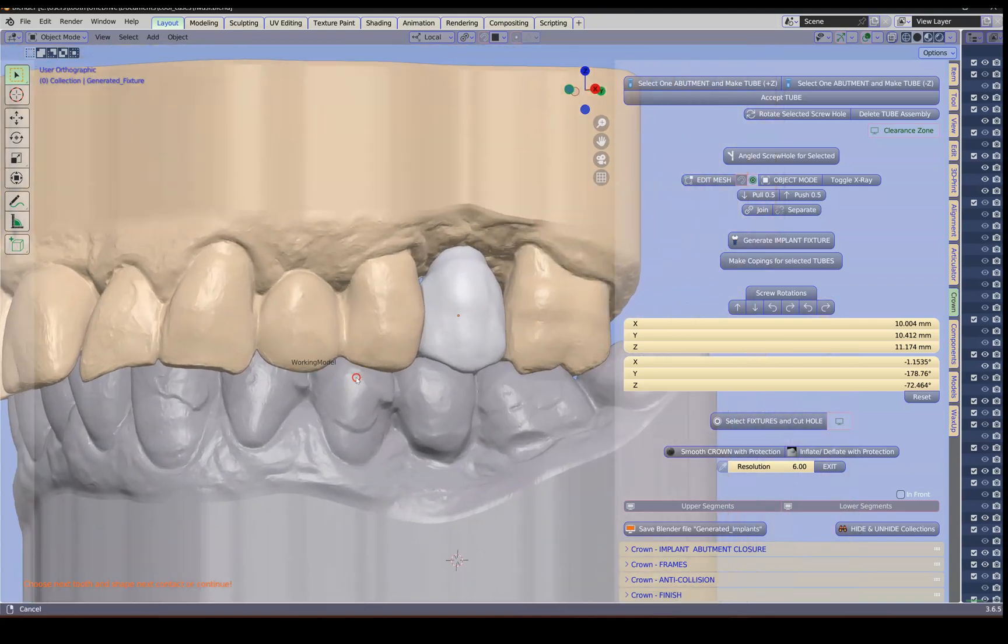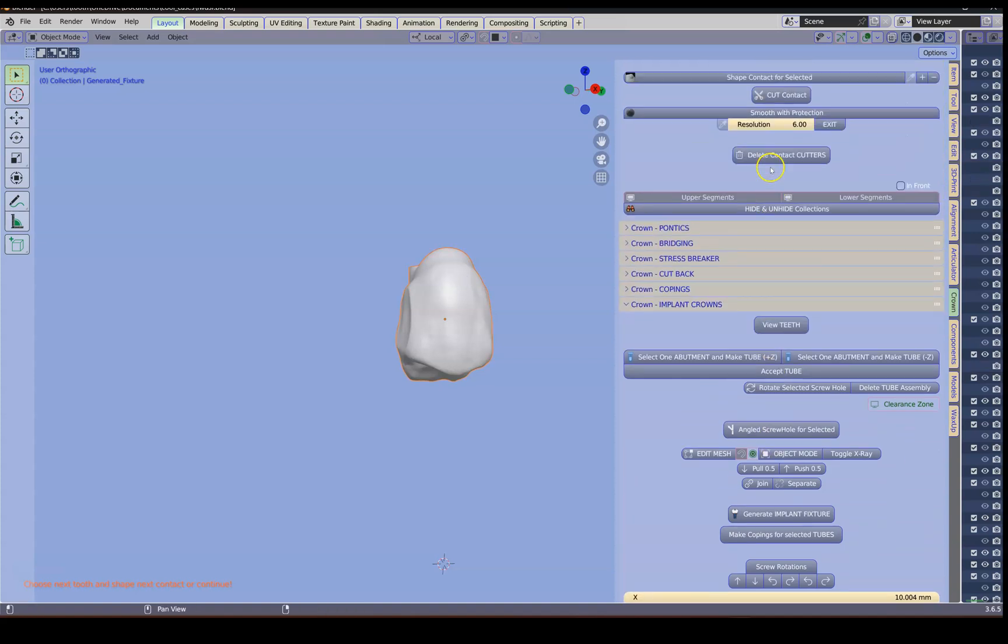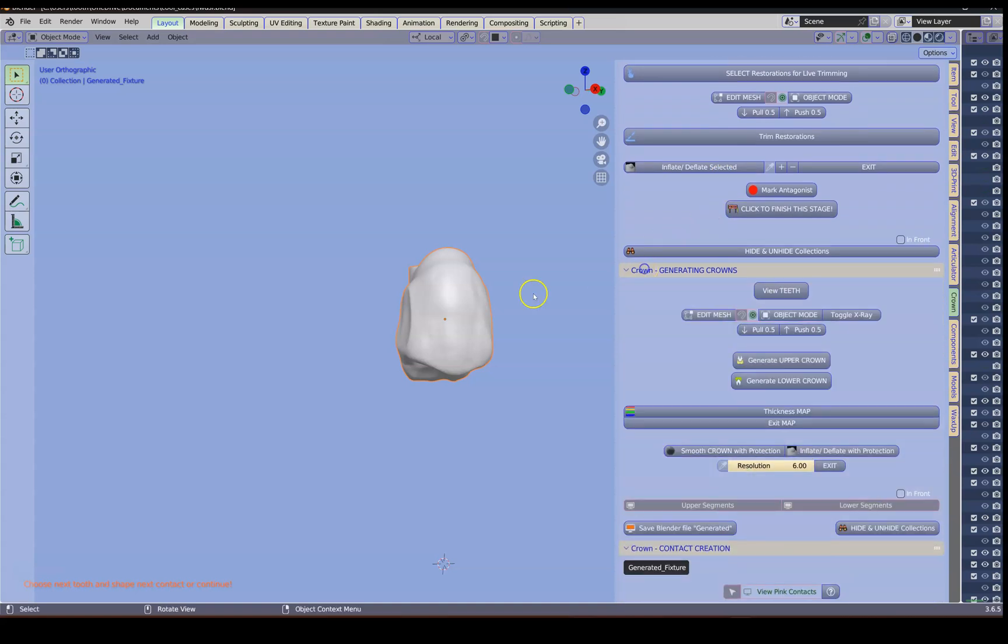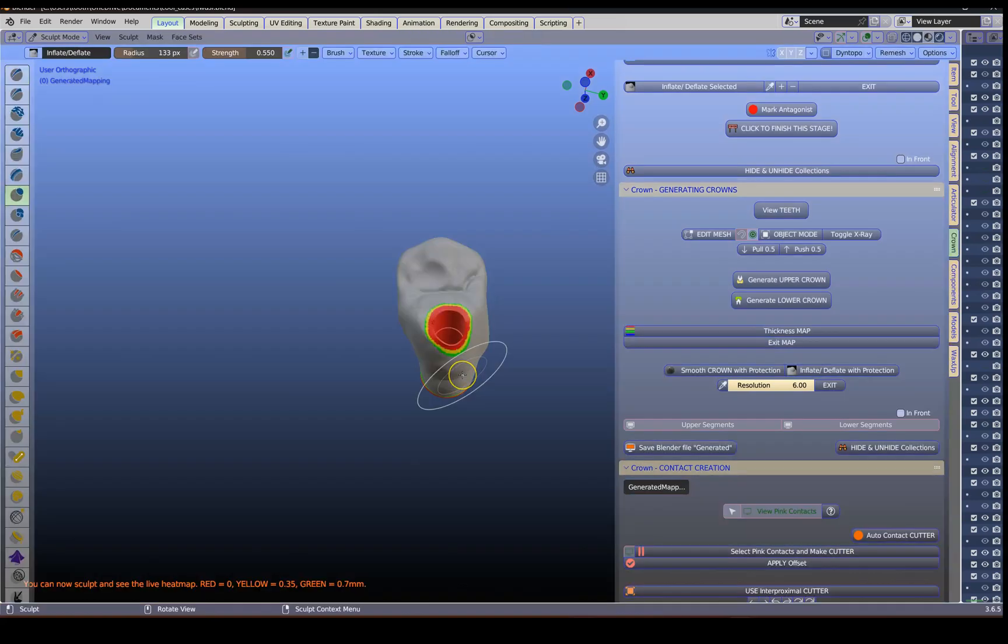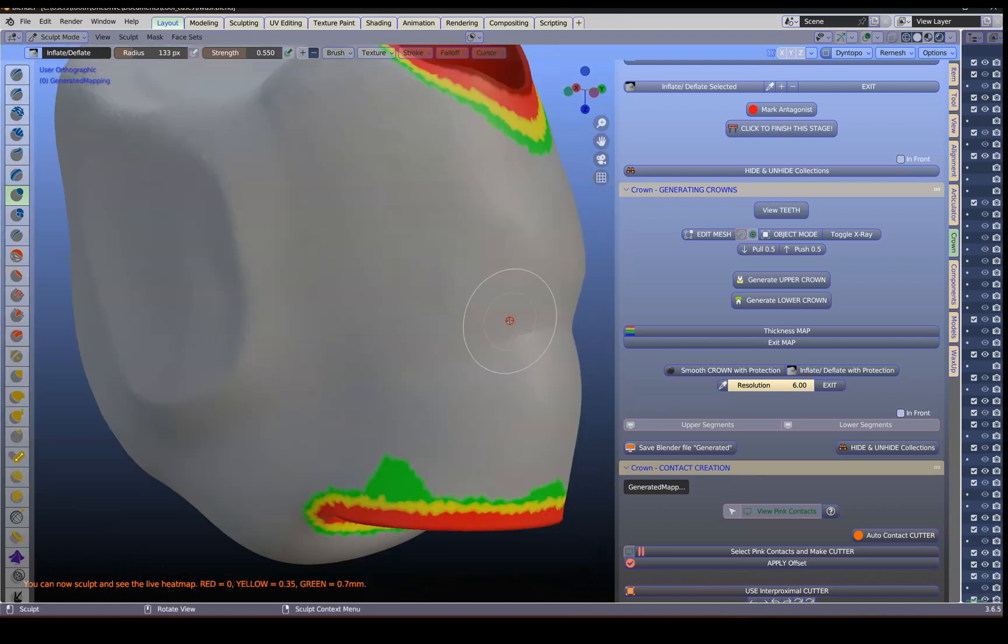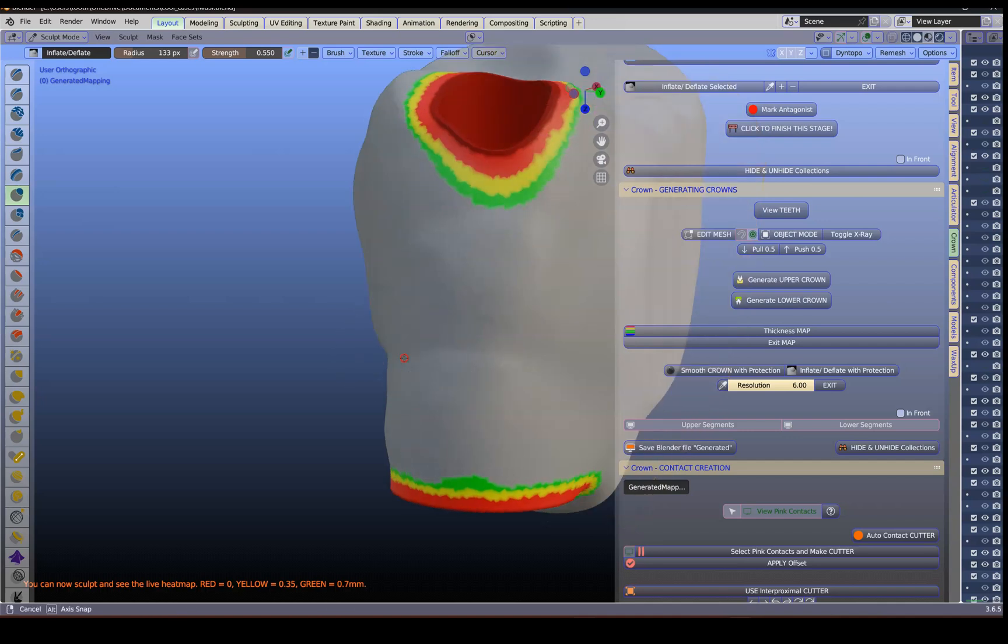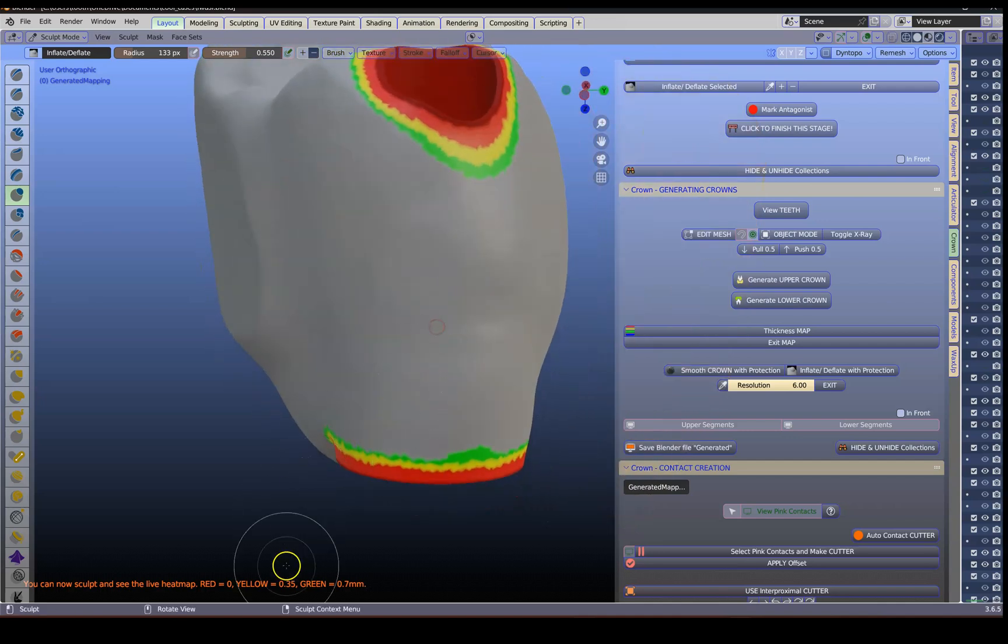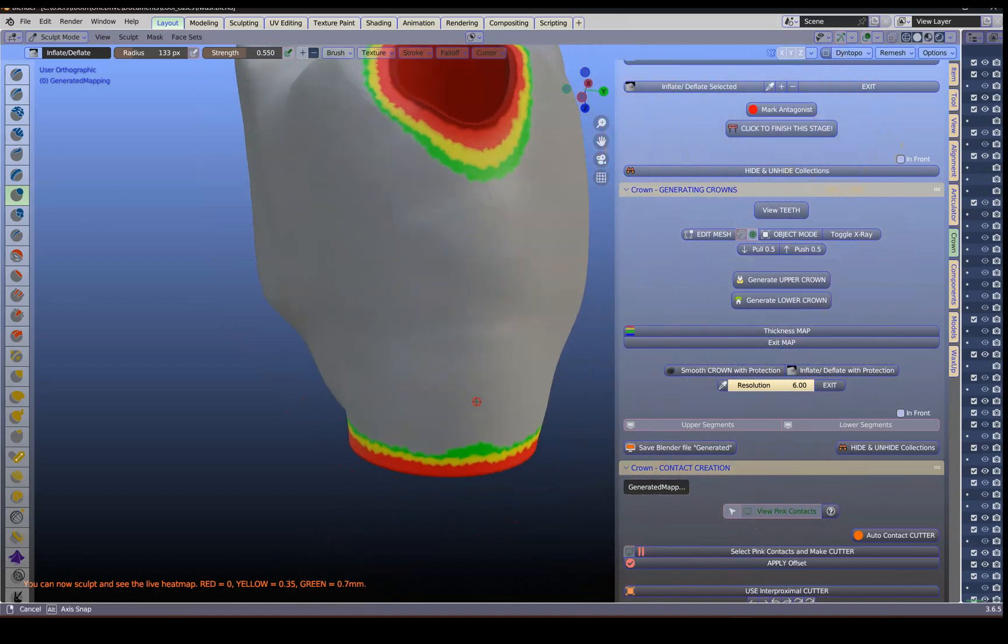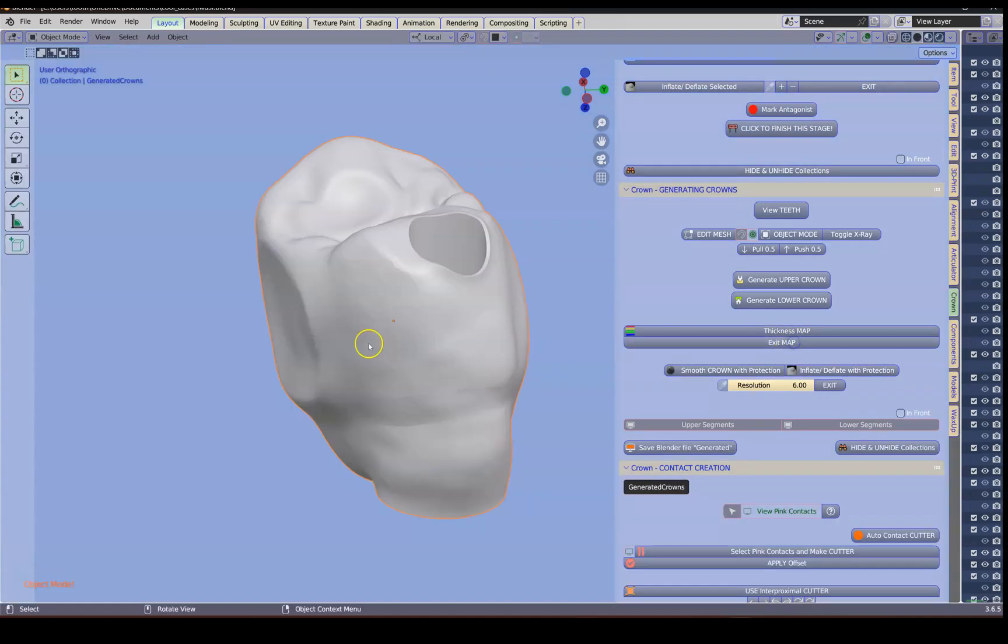Finally, I can still check the thickness. Ctrl-I and hide. We're going to go up a little bit where we have the crowns. The generating of the crowns. I'm going to select this. And we're going to look at the heat map for this. And this will actually give me an indication of how thick or how thin it is. We can quite easily make it thicker if we have to do that. So we know that 0.7 is the green. So we are basically in the clear over here. So I'm just going to exit.